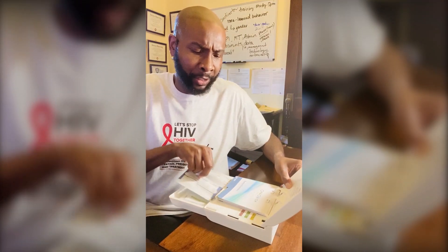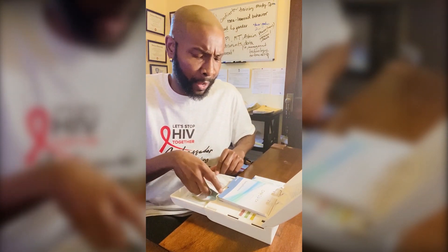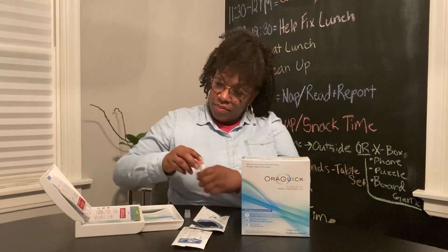you're gonna pull out the HIV self-test stick and the HIV test tube. Step one is removing the test tube and placing it in its designated hole. Step two is taking out the test stick — make sure you don't touch the end with your fingers. So you're pulling it out, and this is what the test stick looks like.